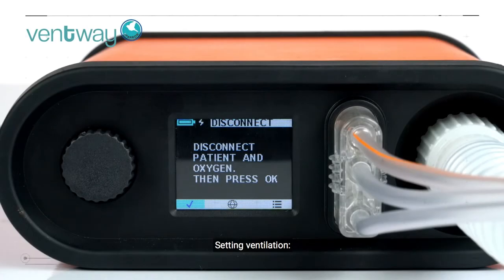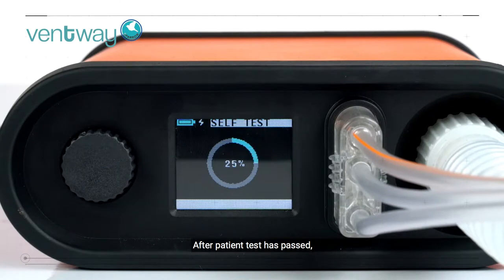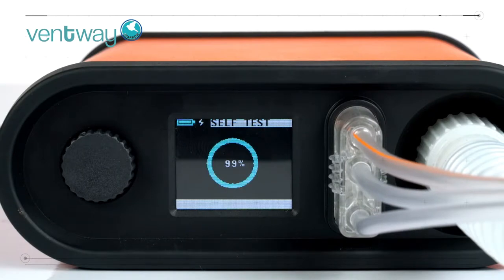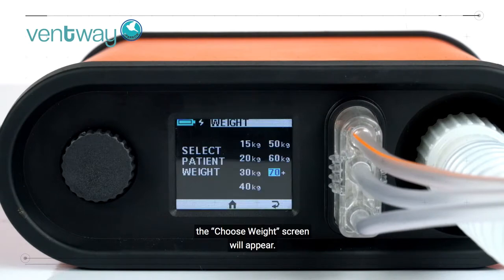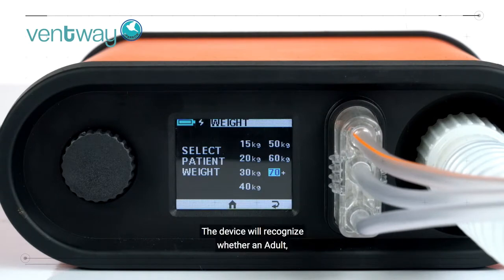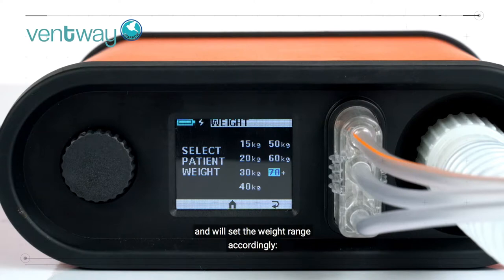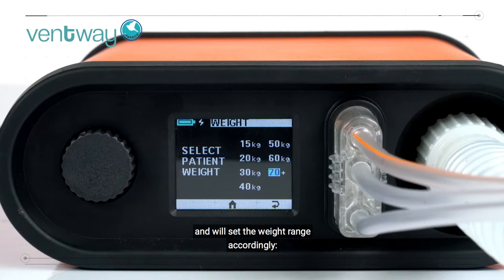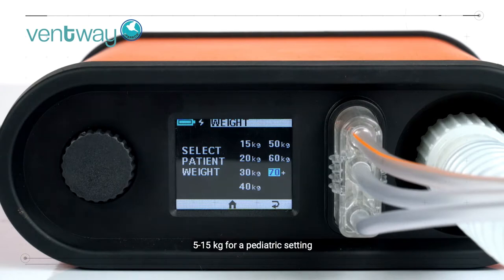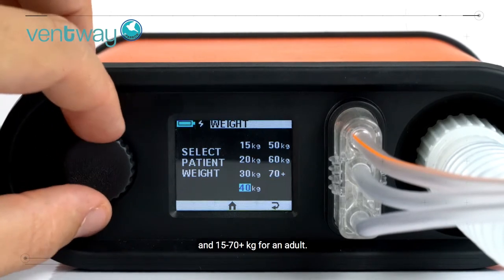Setting ventilation. After the patient test has passed, the choose weight screen will appear. The device will recognize whether an adult or a pediatric patient circuit is connected and will set the weight range accordingly: 5 to 15 kg for a pediatric setting, and 15 to 70 plus kilograms for an adult.